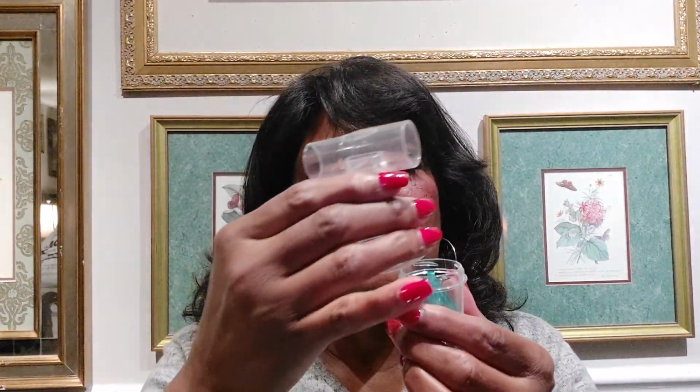And as you go on to a new job or whatever, the nurse would actually show you. But I want to show you the main thing, because sometimes I have forgotten to put the little green piece in. I put my medication in there, and then I put this on, and then it's not working. It won't infuse, okay? Then that medication is wasted. So always remember to put the green in there first, then put the top on, then connect it to the tubing of the child, and then turn the machine on and let it infuse, okay?